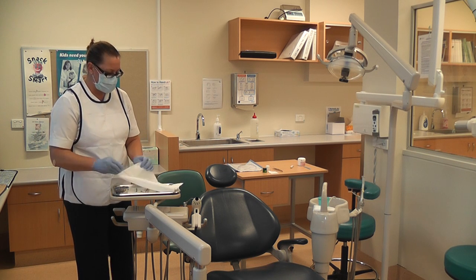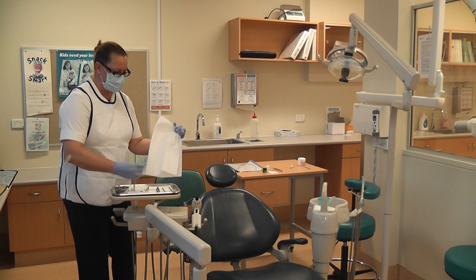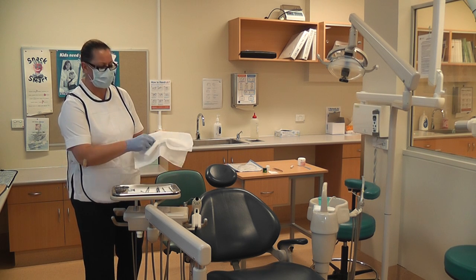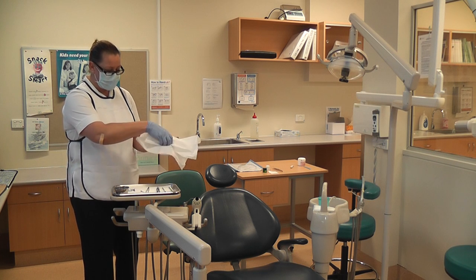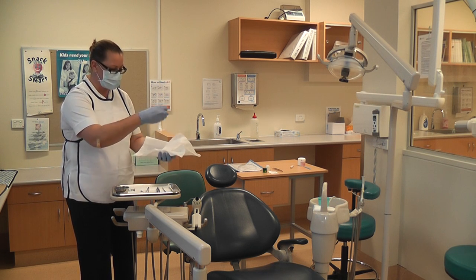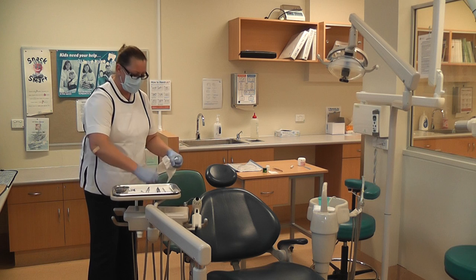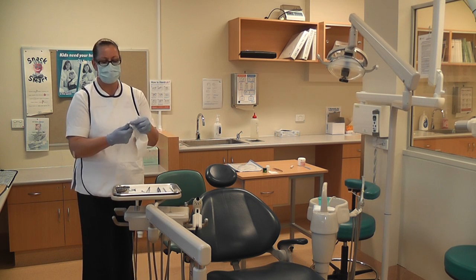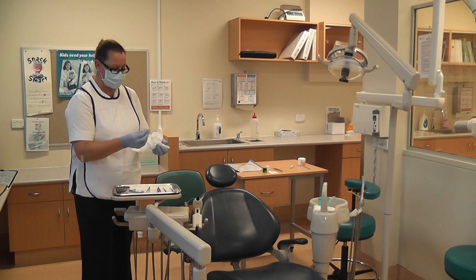You just go around, deciding what is disposable — such as your cotton wool rolls and your micro brushes, your floss — those types of things are just going to be thrown away. We need to disconnect our handpiece and remove our profi cup, which is also rubbish.